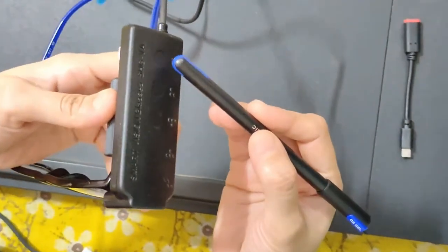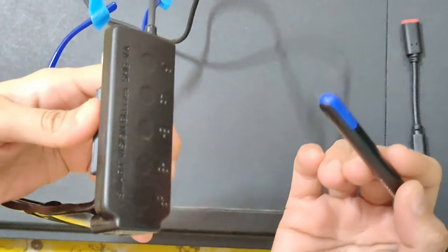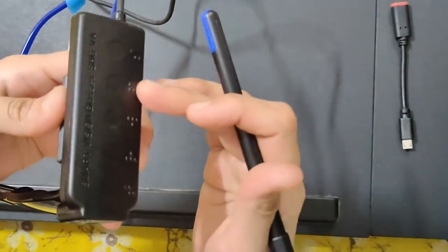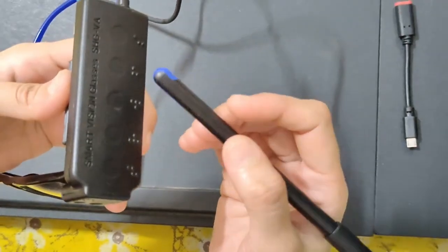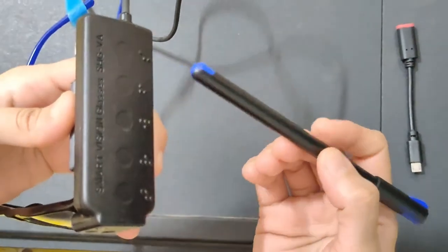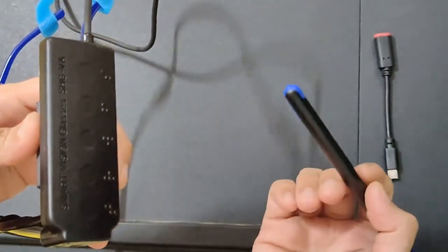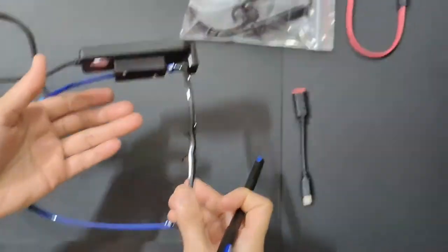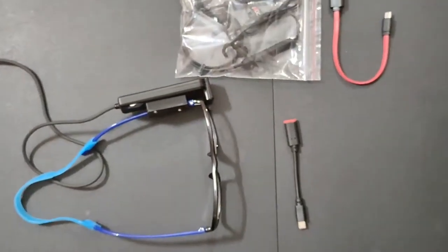The last function is the standby mode — click it to change between any of the functions. If you double tap the storing face button, it will guide you through the steps on how to use the device. You can also call customer care by double tapping that knob. Continuously while using the smart vision glasses, internet connectivity is required.